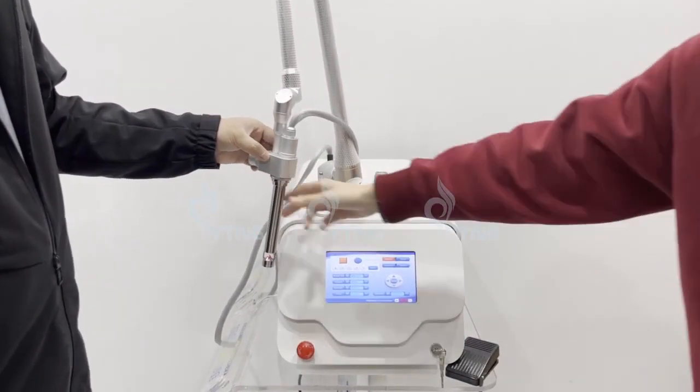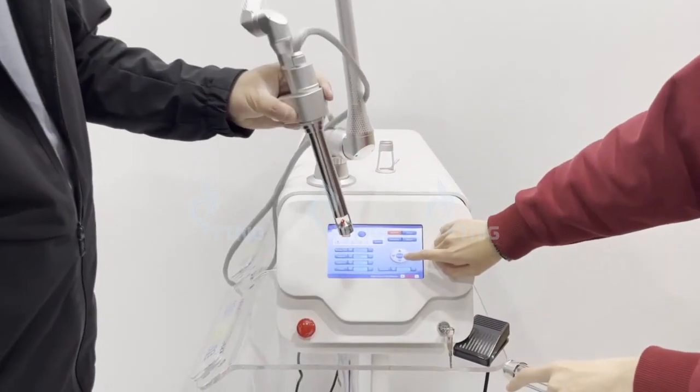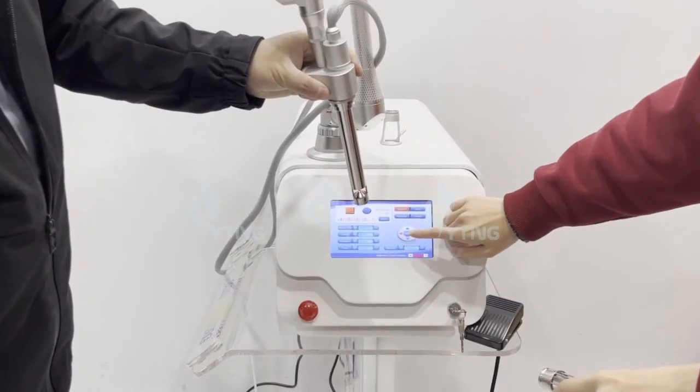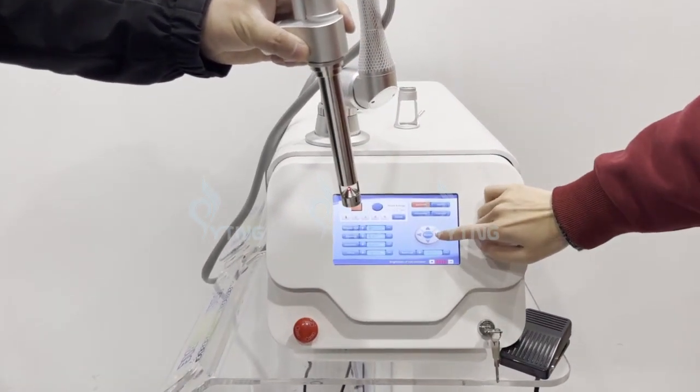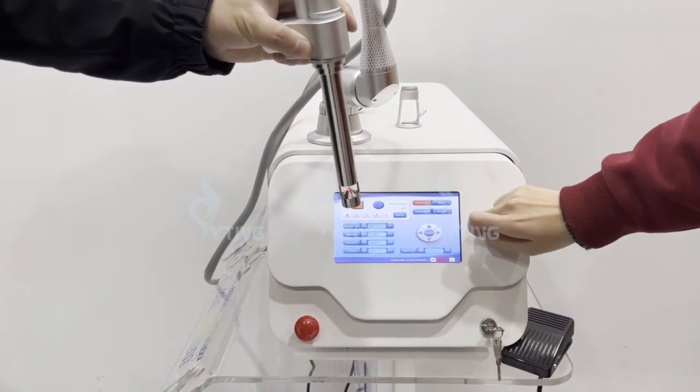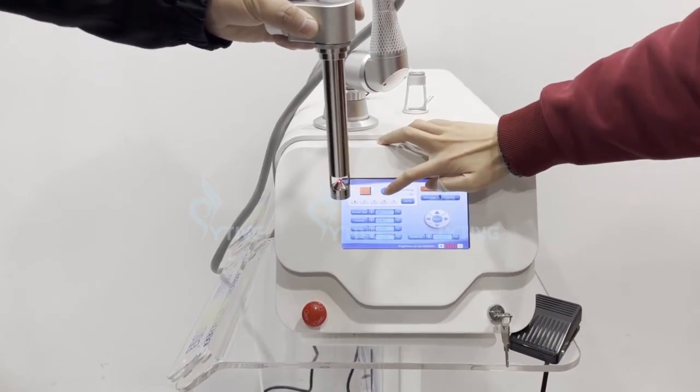You can set the position of this red dot by clicking here and choose the shape here.